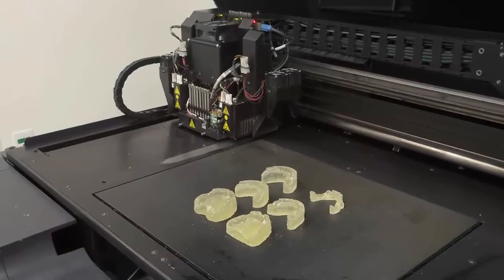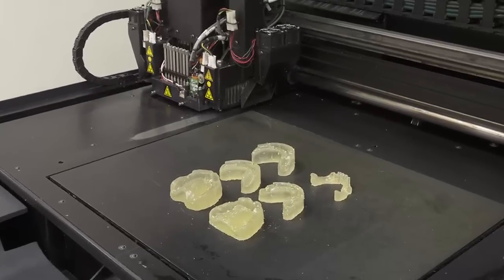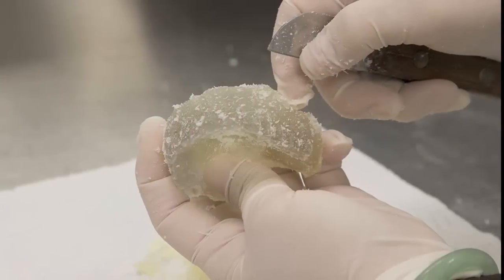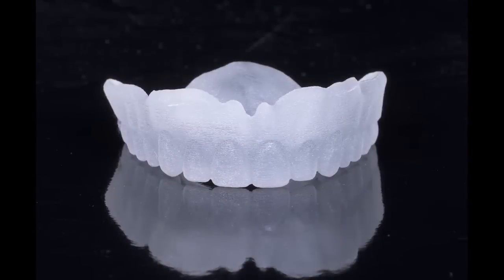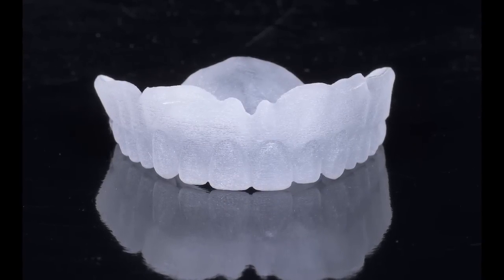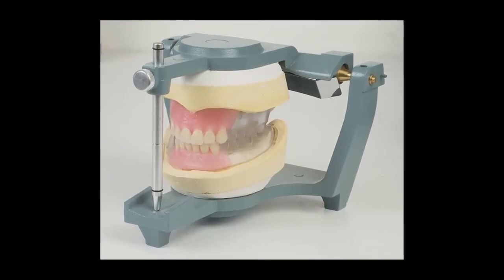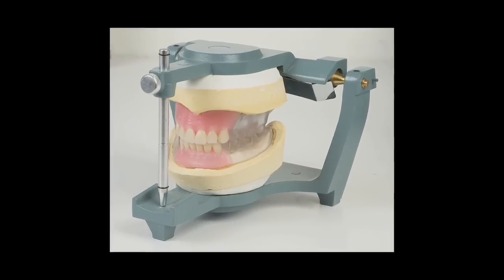Now it's time to 3D print a try-in prosthesis to make sure that the doctor and the patient are satisfied with the proposed restoration. This appliance is essentially a replica of the final prosthesis and is fabricated from a biocompatible, colorless photopolymer. Next, technicians set the final denture teeth in the wax of the aesthetic area of the try-in base.